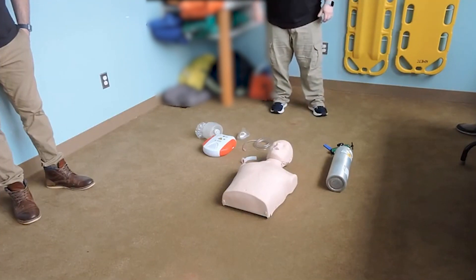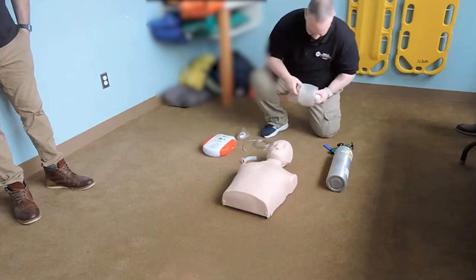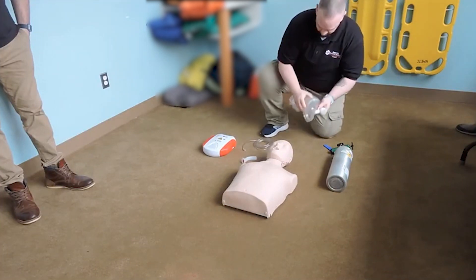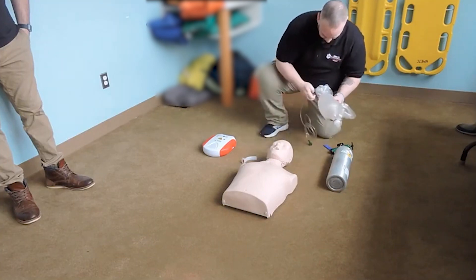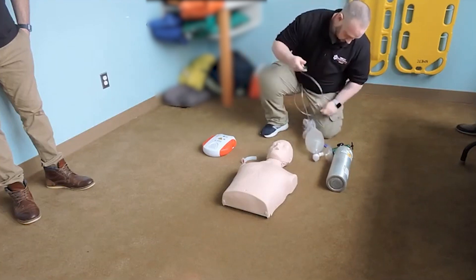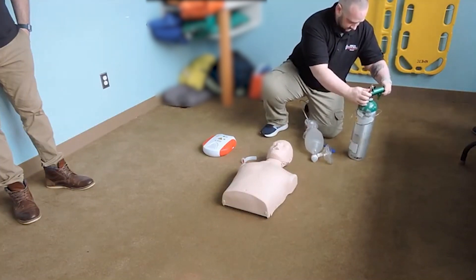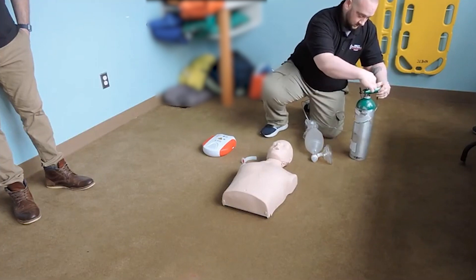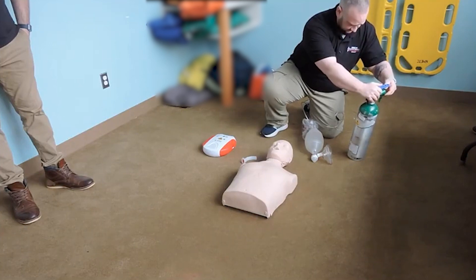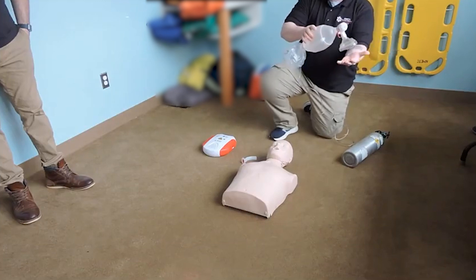You're en route to the call. Checking equipment — scene safety, BSI. I have my BVM and I'm going to assemble it. Attaching my mask, attaching my tubing to the oxygen inlet. Attaching my tubing to my regulator. My regulator is on and secure. Opening the tank, setting it to 15 liters — high flow oxygen. Tank is open. Making sure my reservoir bag is inflating and that it is delivering oxygen.